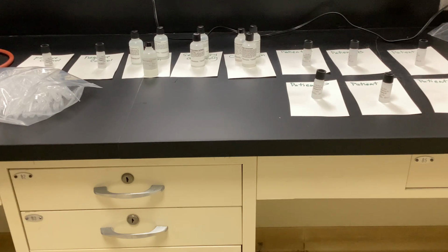Initially, it's going to be light green. If the patient has a positive response, it's going to turn purple. All right. But what if it turns dark purple? We know the antigen-antibody reaction is strong. What if it's a very light purple? Not as strong. So what are some scenarios if it's not as strong? A newer infection. So maybe you didn't have a full chance to get the titers up, all right? Or maybe that's an older infection. So just realize if they have a positive response, depending on the color, it might be a weak response or a positive response.